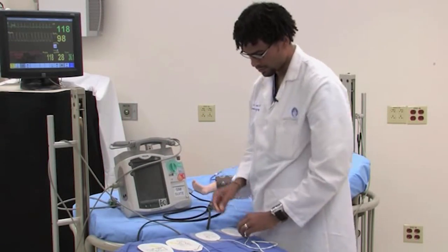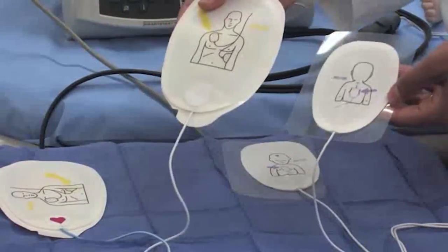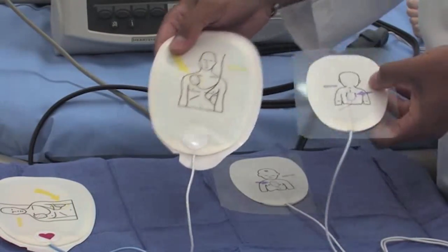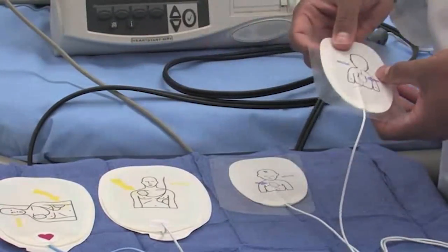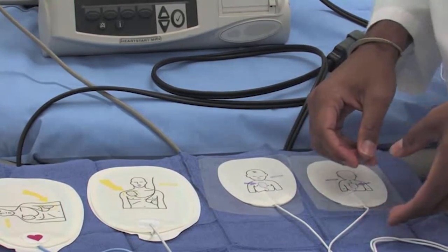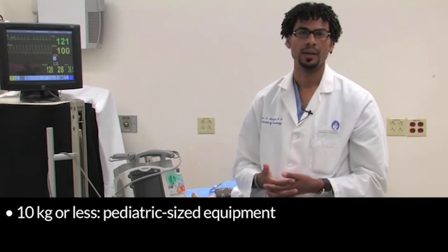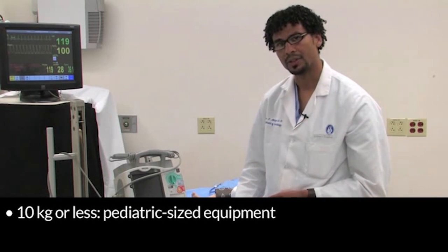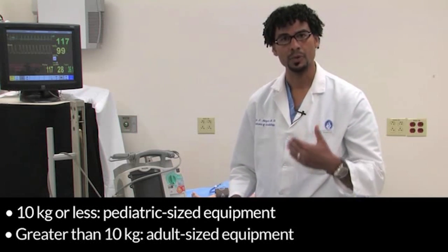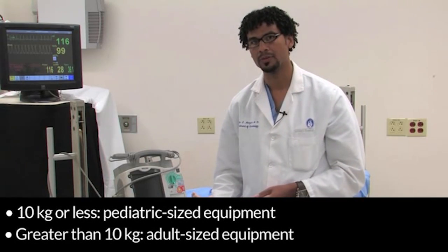I want to show you the size difference with the pediatric and the adult pads as well. The way that we distinguish which size to use is based upon the patient's weight. Patients that are 10 kg and below, we use the pediatric-sized equipment for. Patients that weigh more than 10 kg, we use adult-sized equipment for.